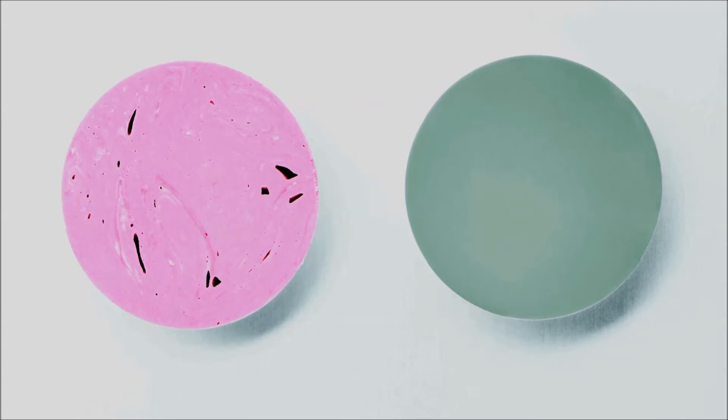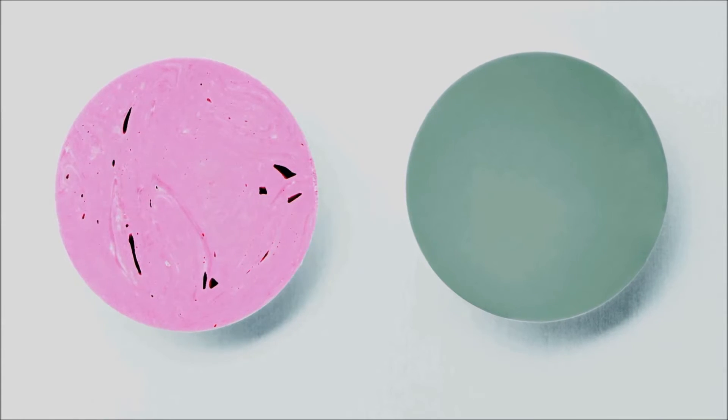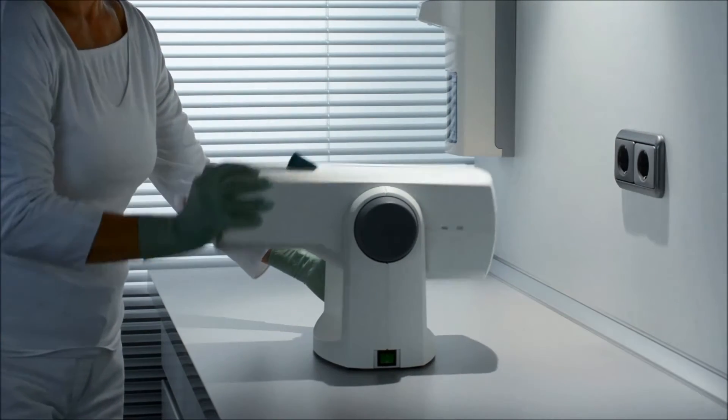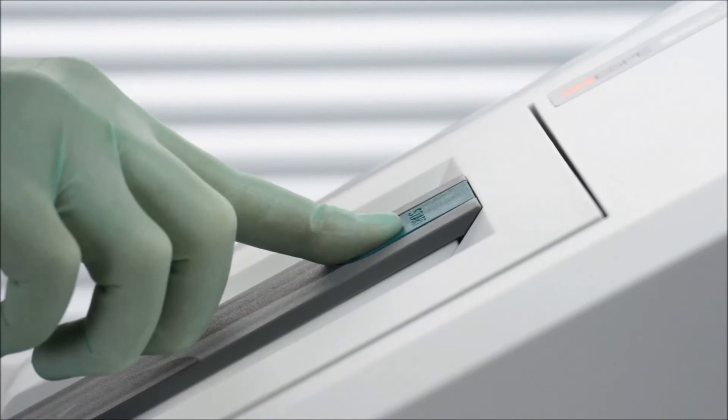The Pentamix light delivers homogeneous and void-free mixing results for precise impressions. Let's see how easy it can be. Just press the green start button, and you're up and running right away.